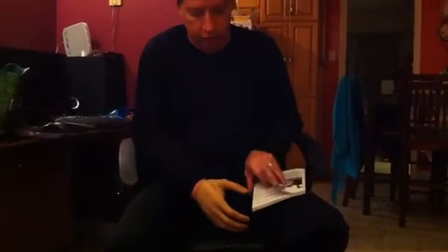The second feature is an opposable digit thumb which I actually control with an electronic pulse. When I open up the hand, it goes into a natural neutral mode when I don't do anything after approximately one second. I can also do a lateral grip, which is the grip most people use in daily life — for example, gripping a book like that — and as you can see I can hold it and it looks a little more natural.